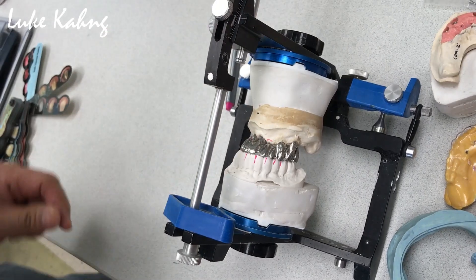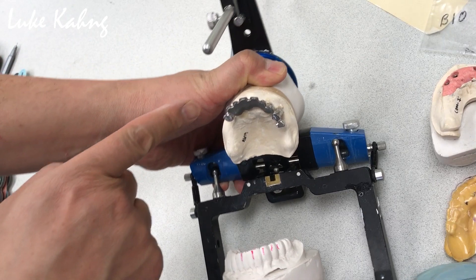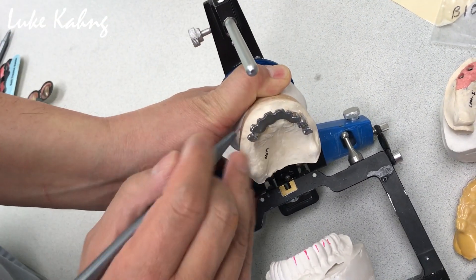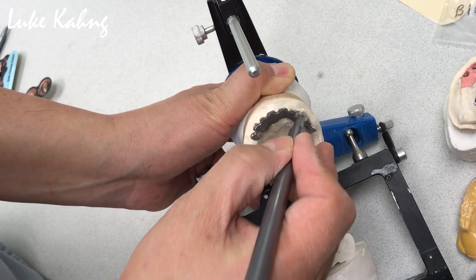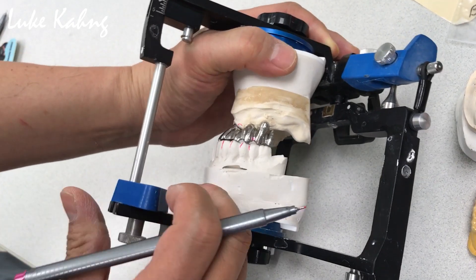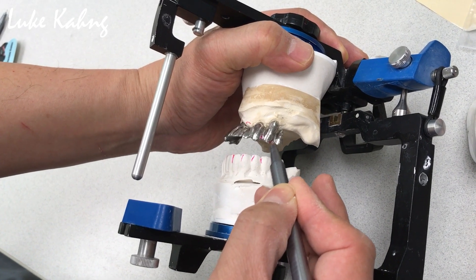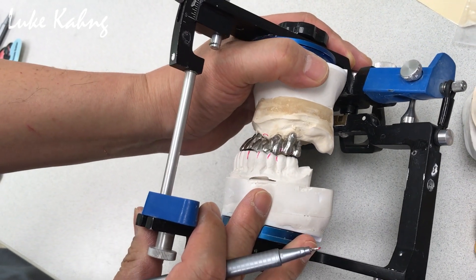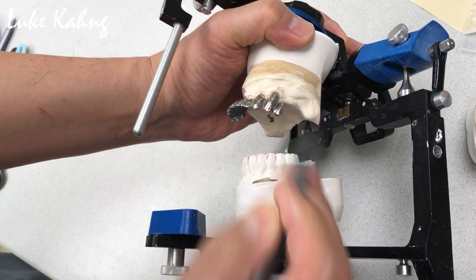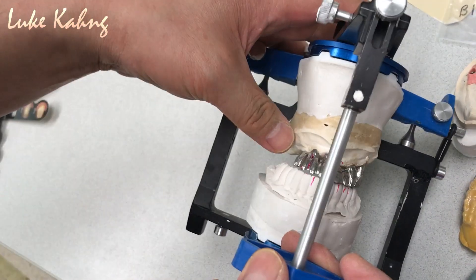Vertical is set up, that's good. Now I see the alignment — the alignment is good. You see it's a little bit sticking out here, so we have to bring it in, just like that. Here it's too much, too long — cut it and make it V-shape. That's the canine. I need more room here, and then I can open the embrasure. Make sure the curve is good. Otherwise it's good.